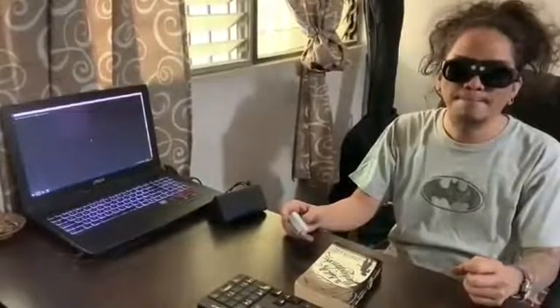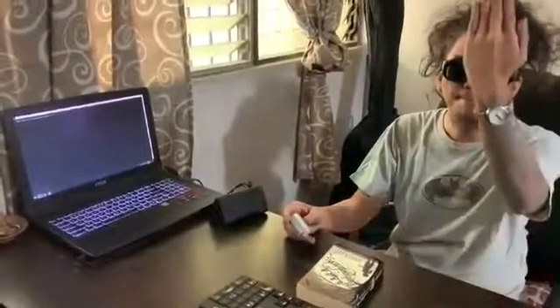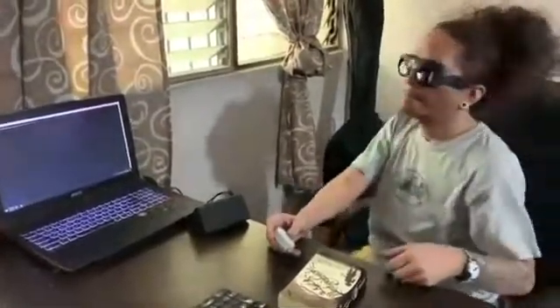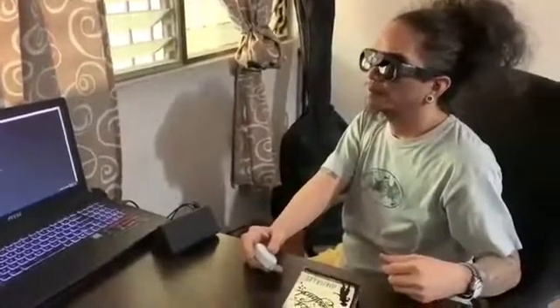Enabling seeing with sound mode. Quick press to deactivate seeing with sound. Distance readings: 7.5 feet, 2.2 feet, 8 inches, 8 inches, 2.3 feet, 2.7 feet, 2.7 feet, 6.8 feet, 6.8 feet, 2.3 feet, 5.7 feet.